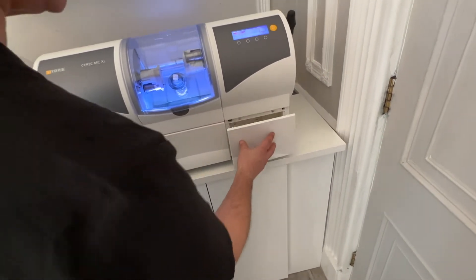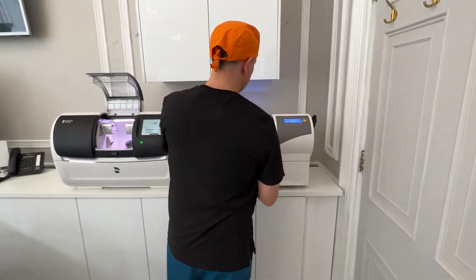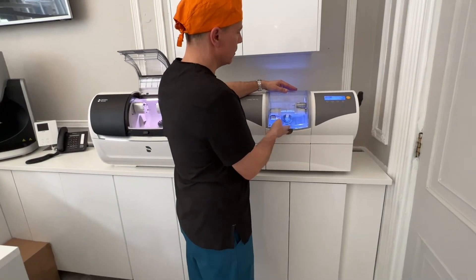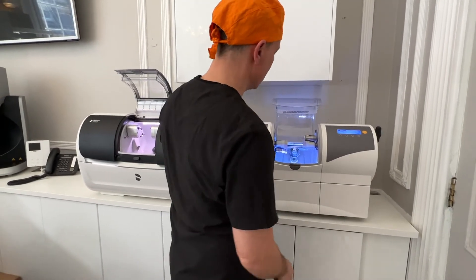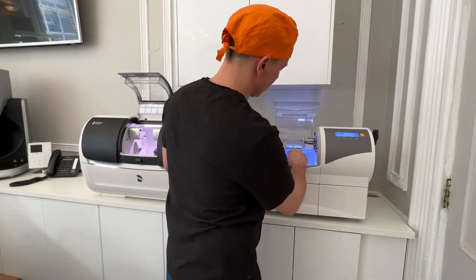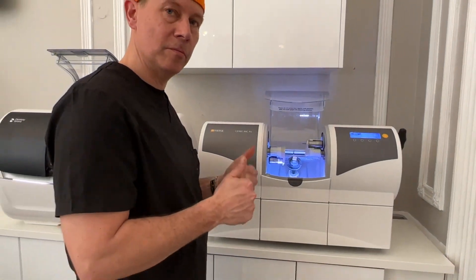Over here is just a spare space for some blocks. When you open the door on this one, we've got to be really careful so that you don't push it right back. You recognize the right and left motors and we have the same setup really — and that's the two mills.